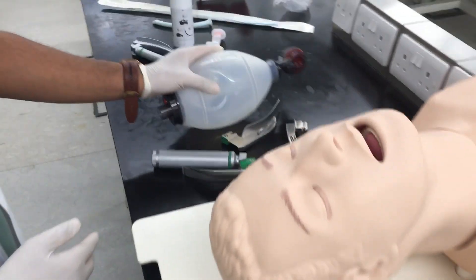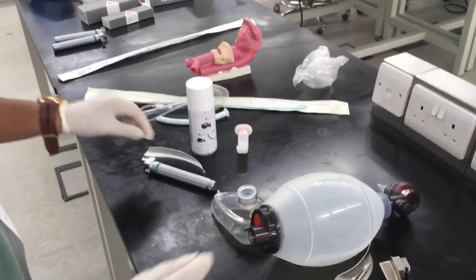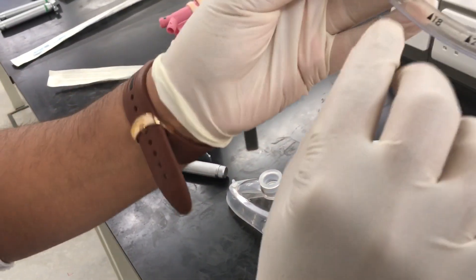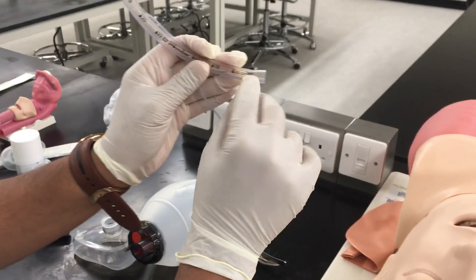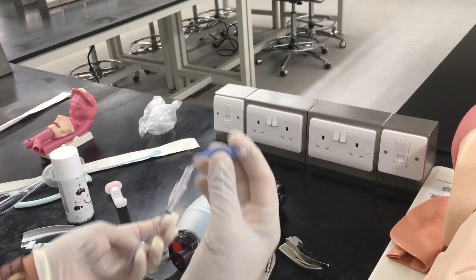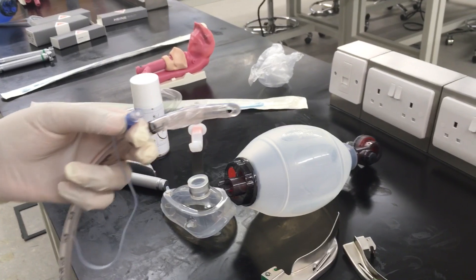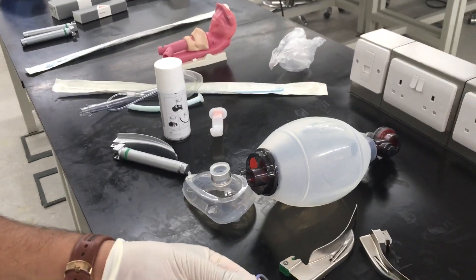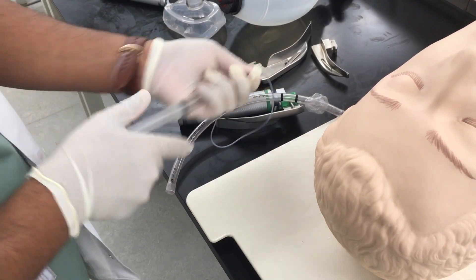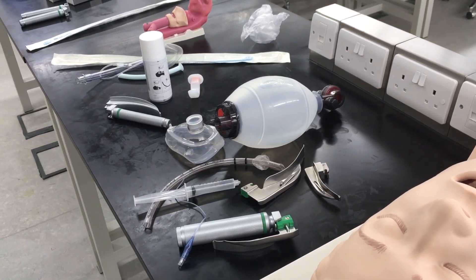This is the ambu bag, this is the LMA, and we have the tube. This is an adult-size tube, 8 millimeters in diameter. You can see the depth and length markings on the tube itself. Make sure the balloon is working by inflating it gradually and deflating it completely.